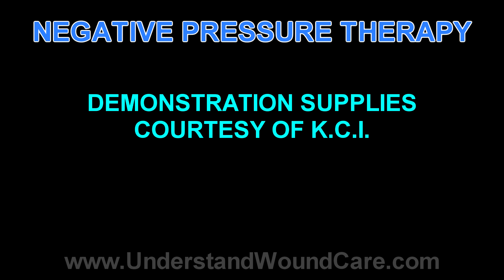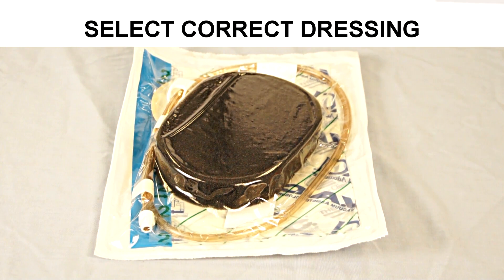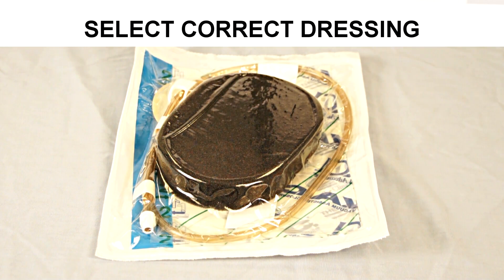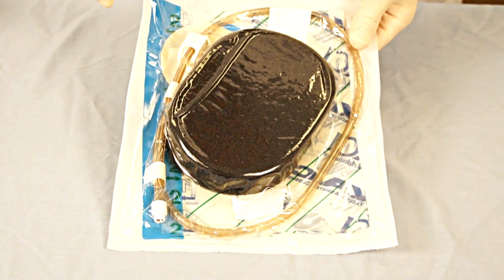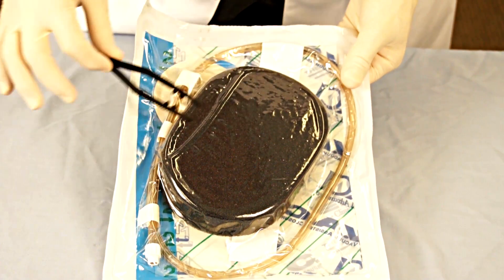The wound models and dressings demonstrated in this video are courtesy of KCI, and there are a variety of vendors that supply dressings and vacuum devices. Negative pressure therapy wound dressings come in a variety of designs. The model we will be using for this demonstration is a foam-based primary dressing supplied by KCI. This foam dressing is seen here as this black foam.